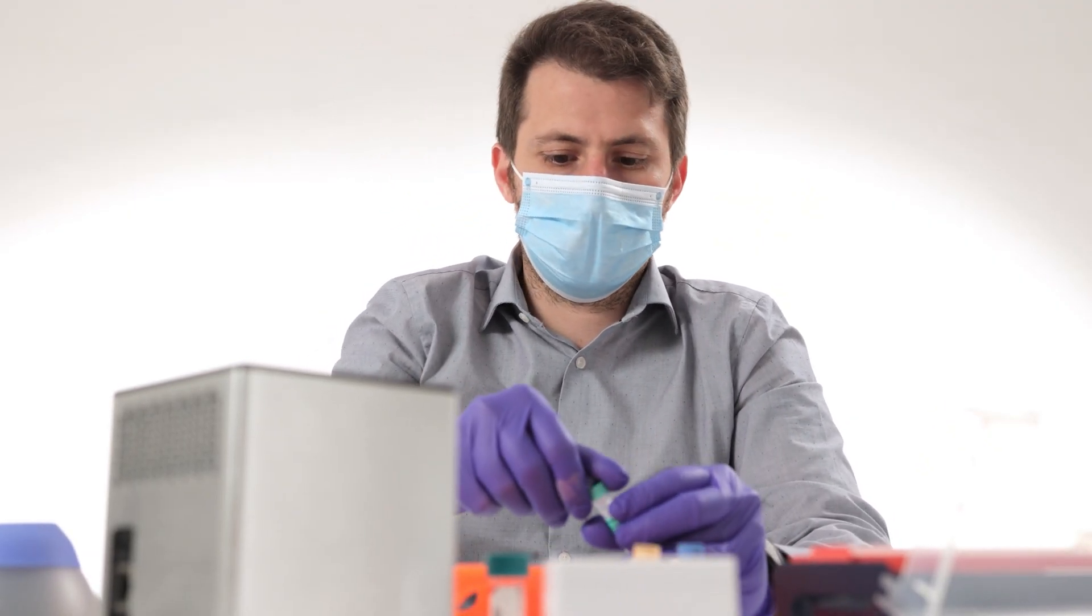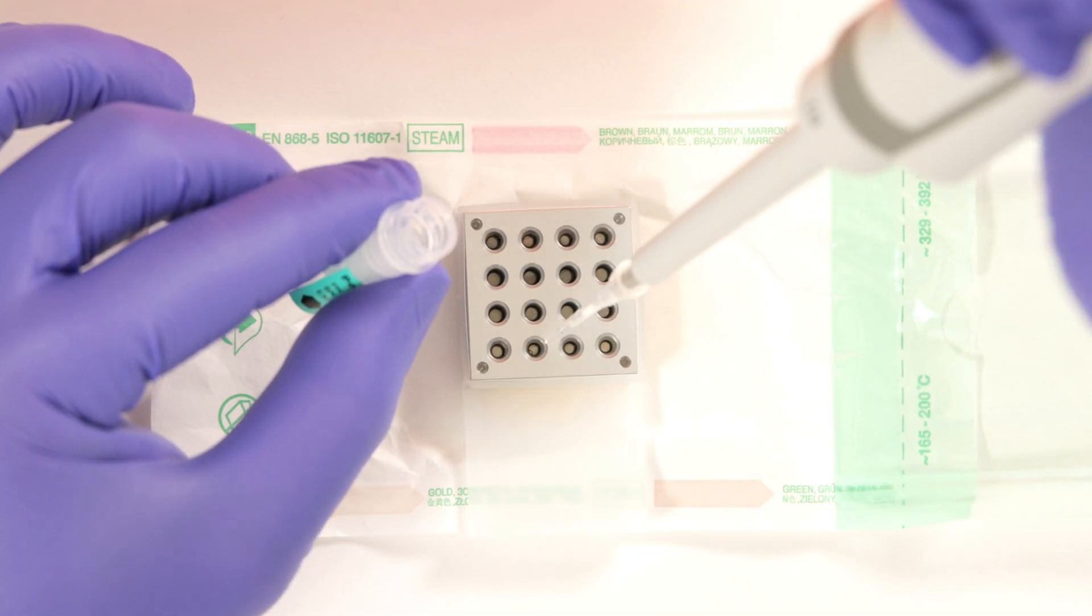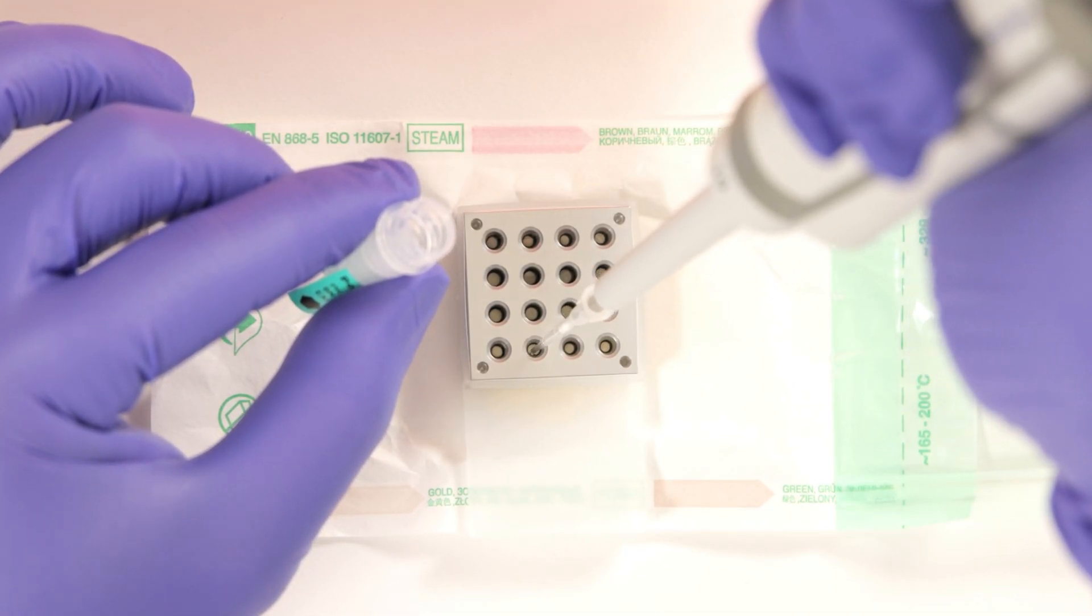Finally, the quality control reagents are loaded, one for each mix of reagents, to ensure that everything is working properly.